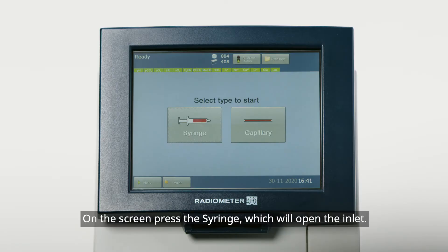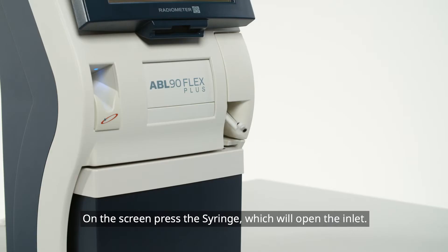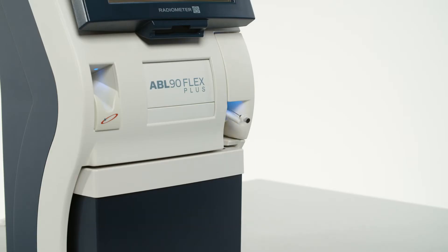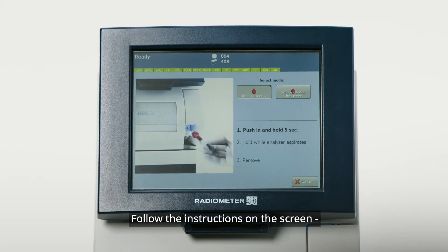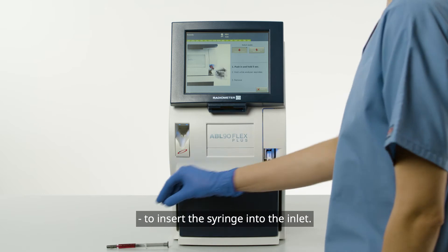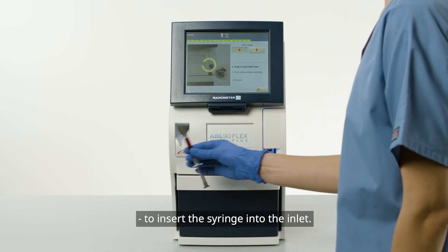On the screen, press the syringe, which will open the inlet. Follow the instructions on the screen to insert the syringe into the inlet.